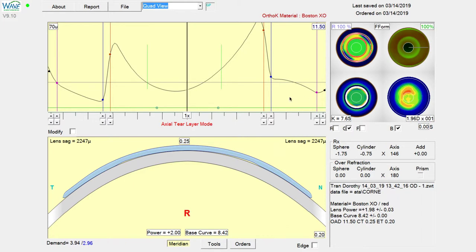What we're going to do is decrease sag out here by 20 microns. You want to right click on the graph and you can see here at the paint control point we're currently at a sagittal height of 1958. If we decrease that by 20, then our new target is going to be 1938.